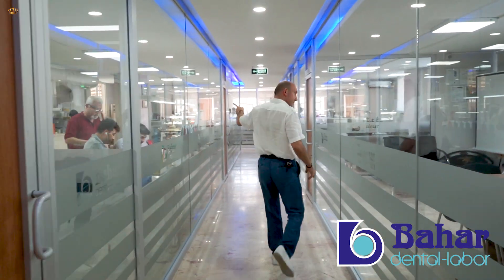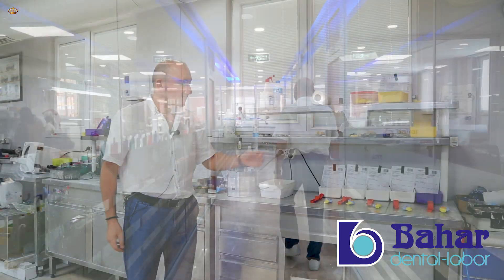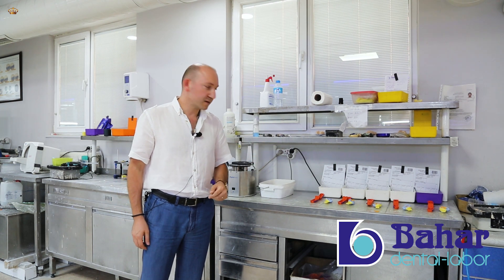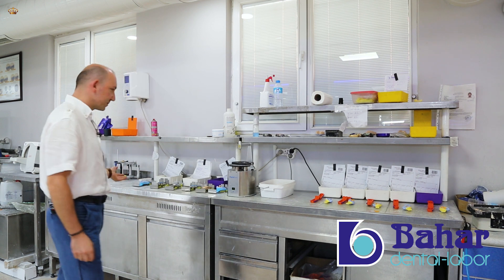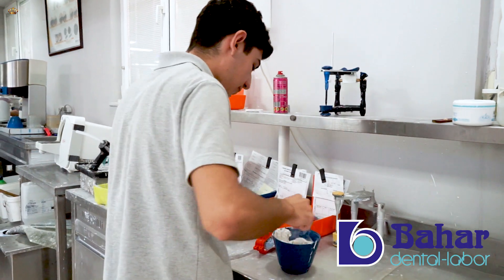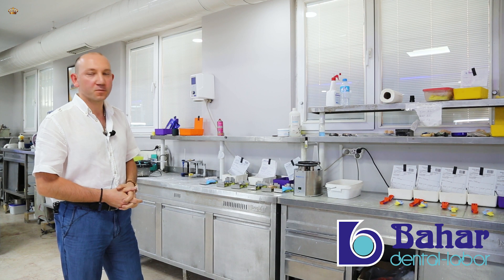Our framework department. After the registration process is completed, as you can see, the plaster models are created. In our framework department, a total of 10 technical specialists work in two production shifts.